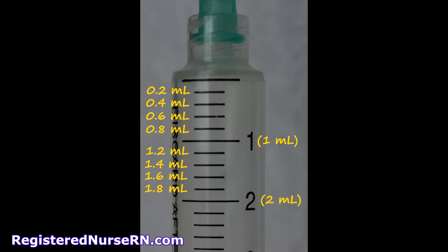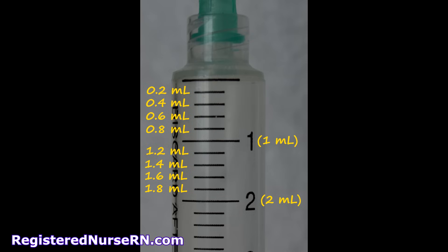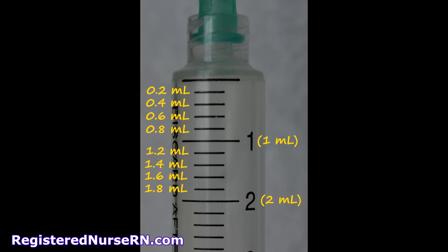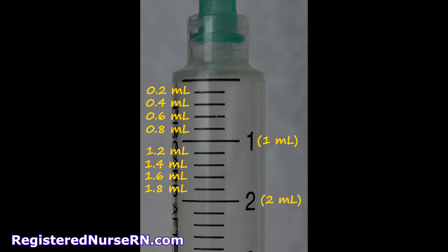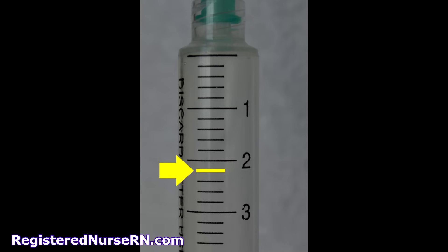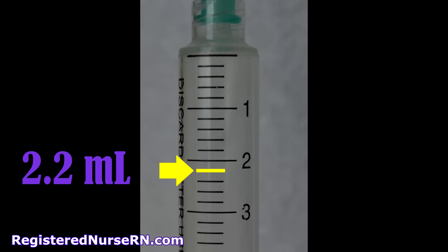Now let's look at the 5 mL syringe. This has a few more lines between the main measurements than the 10cc syringe. The top line is 0, then below that you have 0.2, 0.4, 0.6, 0.8, and then the large line is 1 mL. After that, you continue counting by 0.2s — 1.2, 1.4, 1.6, 1.8, 2 — and so on until you reach 5 mLs. Based on the yellow line, the answer is 2.2 mLs.